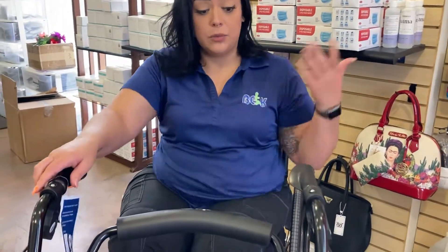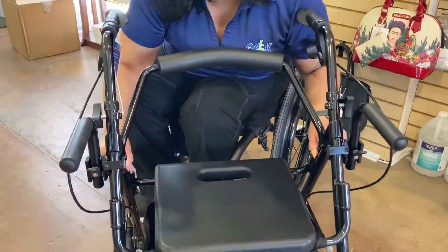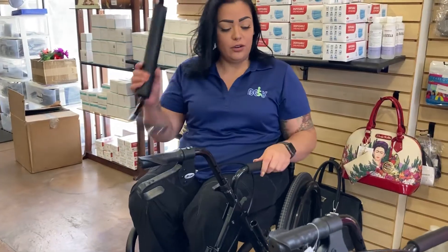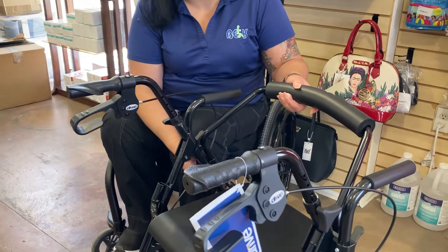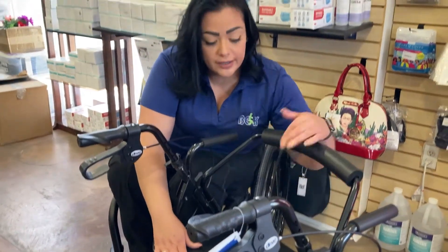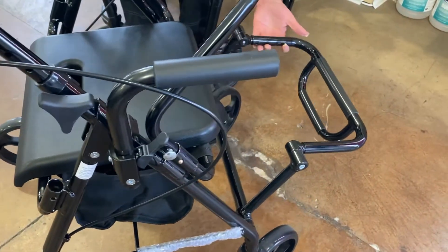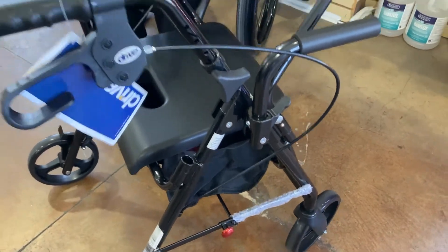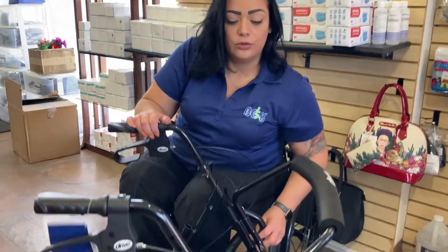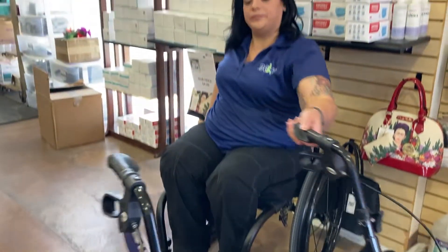You will sit here and this will be your backrest. When you're ready to go back into walking mode, you would put the backrest here — because remember, you're still able to sit to rest. The footrest will go on — the footrest is also adjustable, so if you're shorter or a little bit taller, this can be adjusted. Foot will go in there. Armrest will go down. And ta-da — back into a walker! And you can also sit and rest.